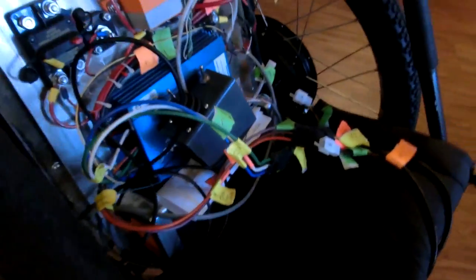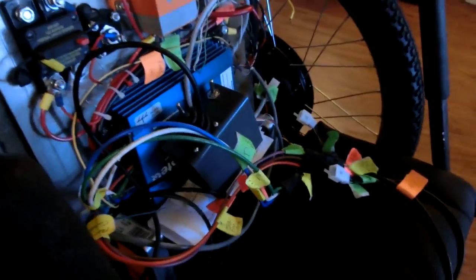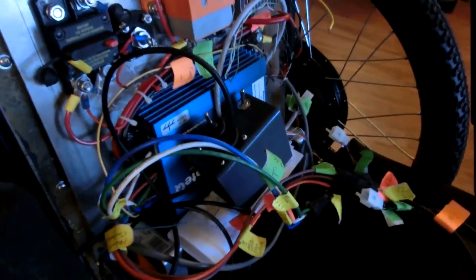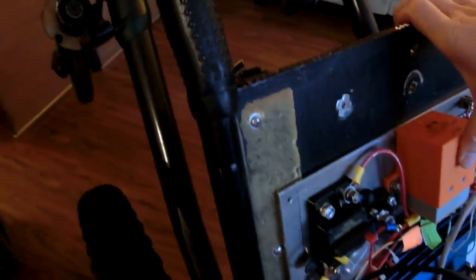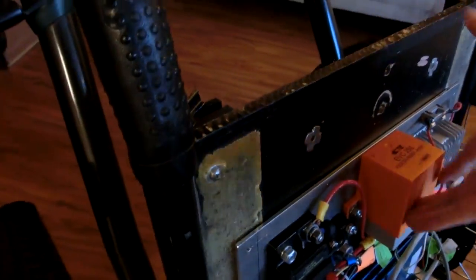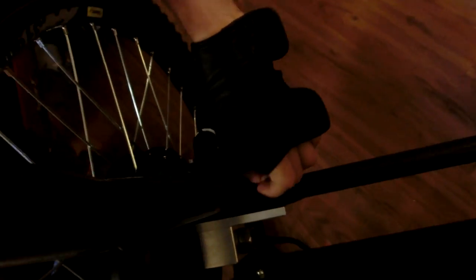If you flip it up. Whoa. You can see how I, you know down here these brackets are custom made to mount up the wheels. Okay. So the wheels don't pop off do they? No. Not on this chair.